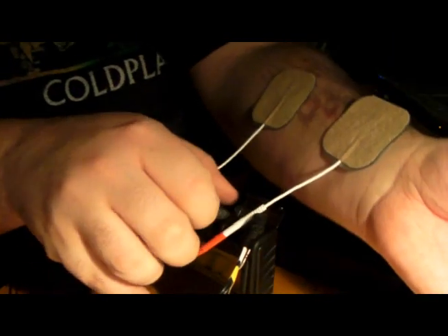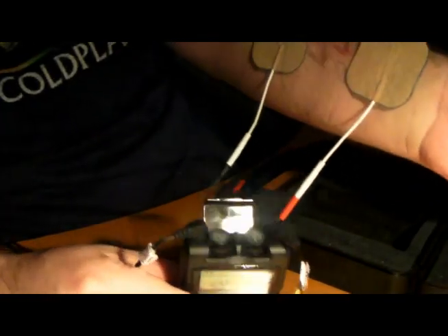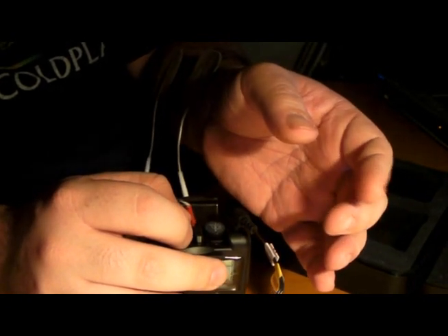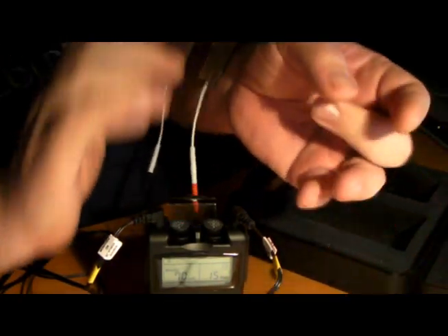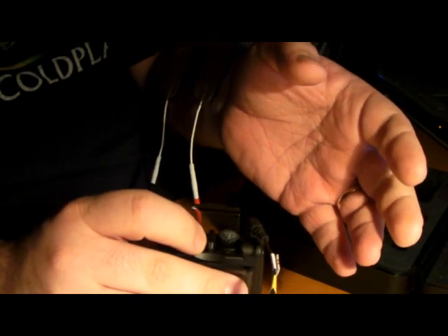What you do is stick the pad to where the pain is. You put it there — there we go. I just put on one to show you guys. As you can see, my fingers are starting to twitch a little bit. They actually move on their own. The higher you put it — see? That was a little too high there. I had to turn it down because it was going crazy.